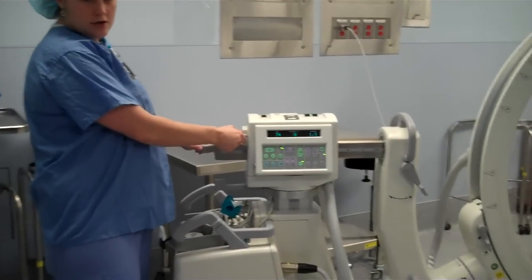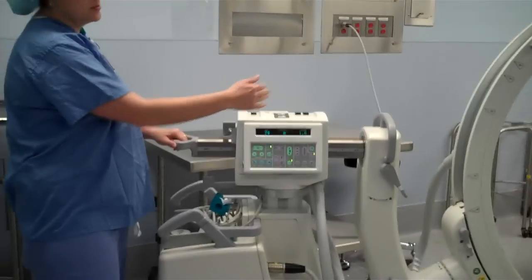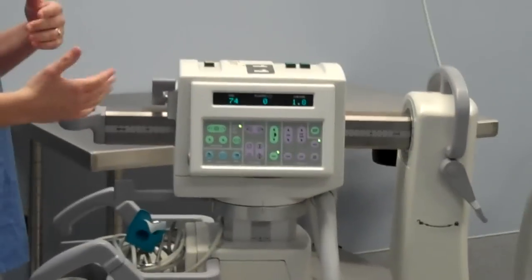So it's a good idea to start your case with this lock about halfway in. You want to do about halfway in and halfway out — it gives you a little play on either end.